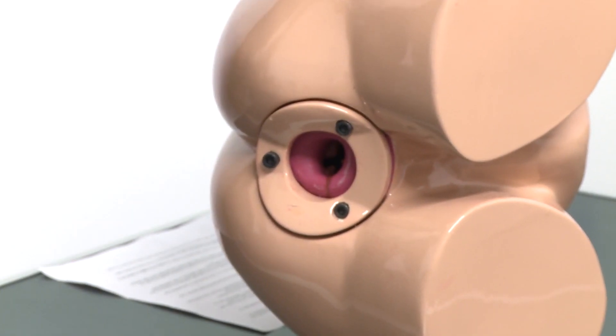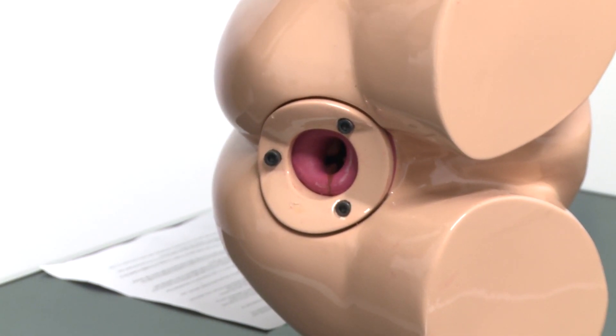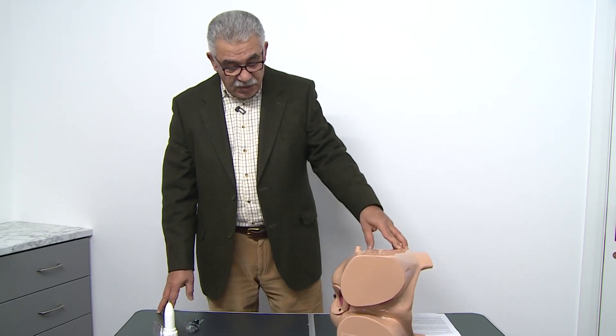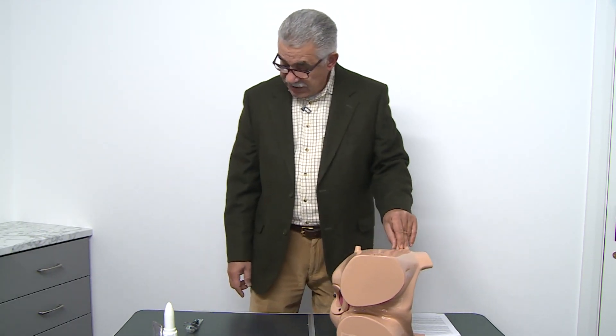This feature is patented and has proved to be very good for patient discomfort. We're using for this procedure this mannequin, which we developed ourselves. It has a full rectum and anal canal. It's actually for teaching of rigid sigmoidoscopy and proctoscopy, and it has hemorrhoids which we will be able to see.